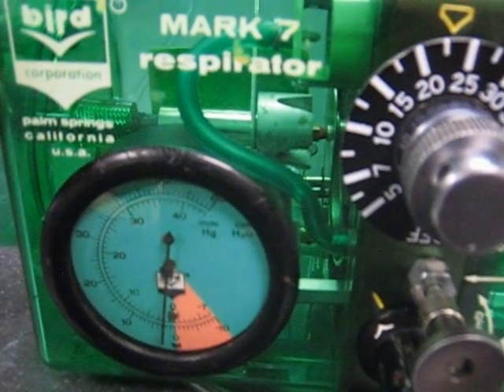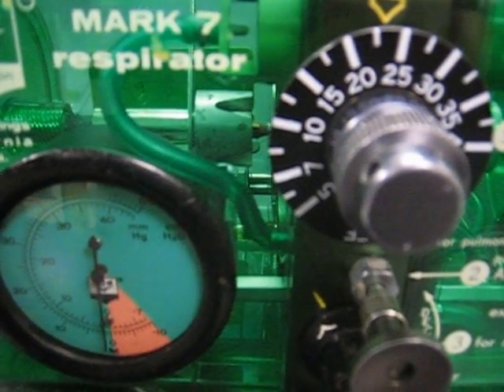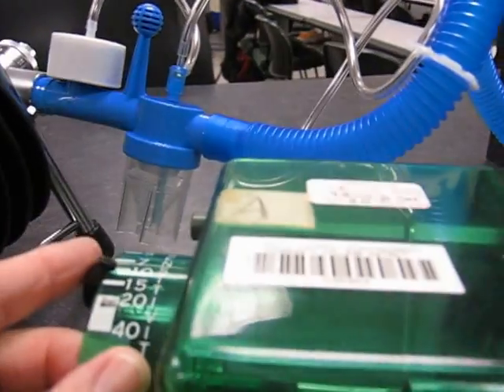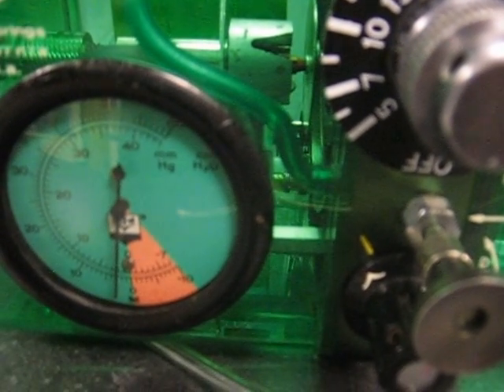It's actually a little too sensitive, so I'm going to move it up a little bit. I'm going to move it up just a little bit more. I'm moving it with the controller right here. There we go.